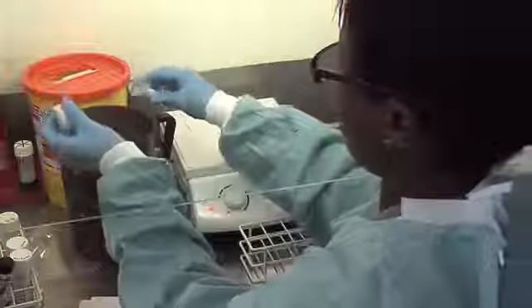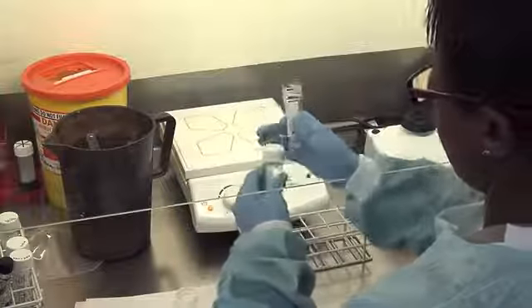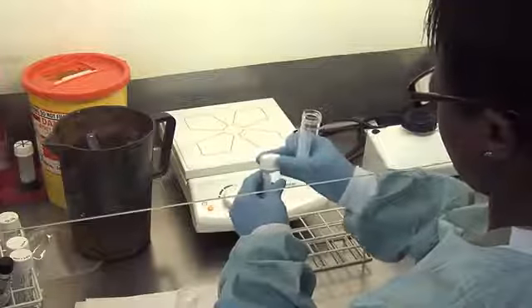After centrifugation, the supernatant is decanted and the concentrated deposit is resuspended in phosphate buffer to neutralize the sodium hydroxide, and it is vortexed and re-centrifuged. The final buffered deposit is inoculated into a liquid culture media and a solid slope culture media.